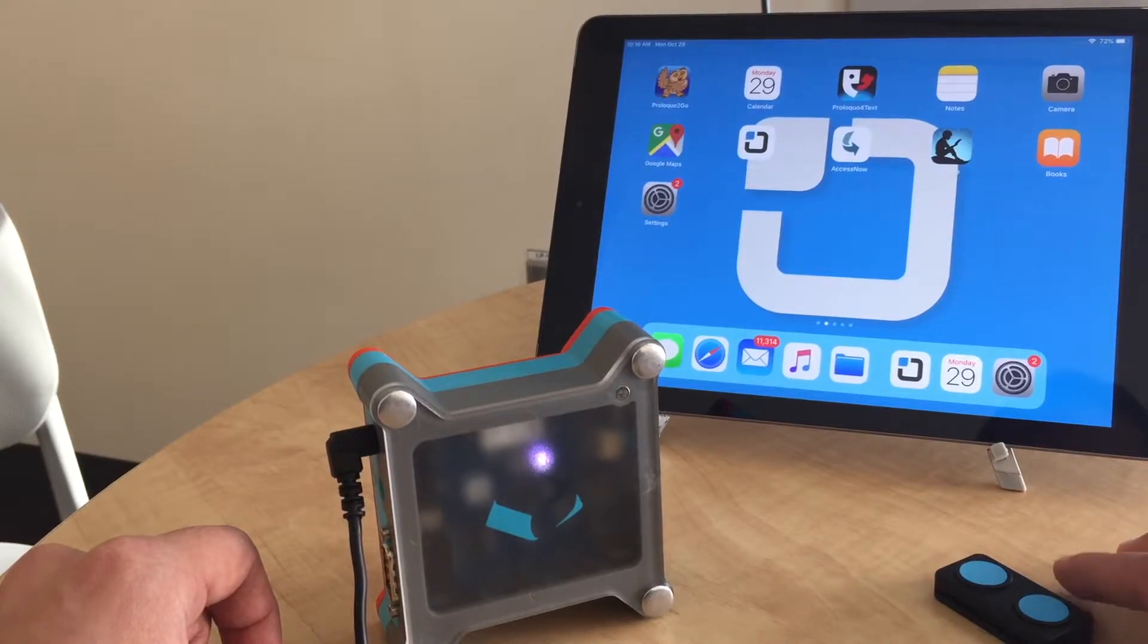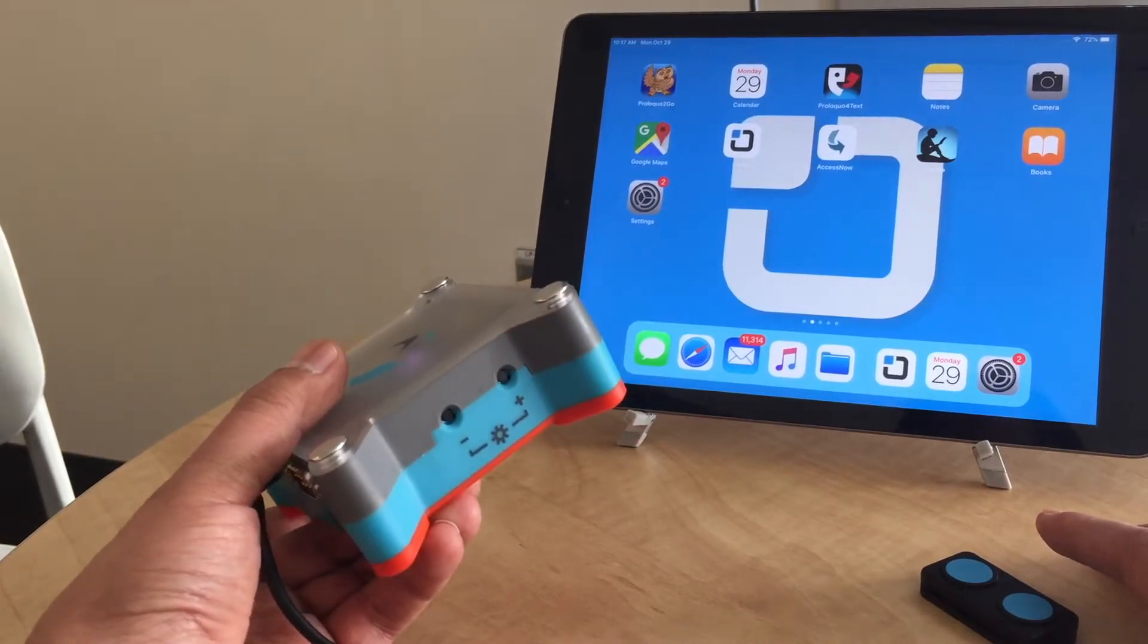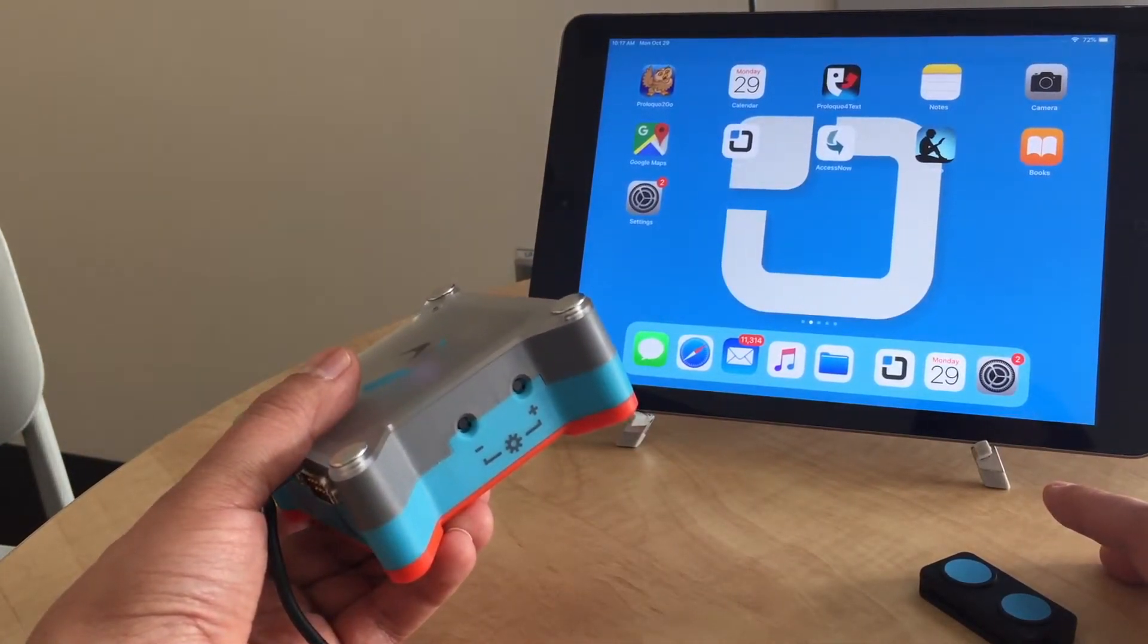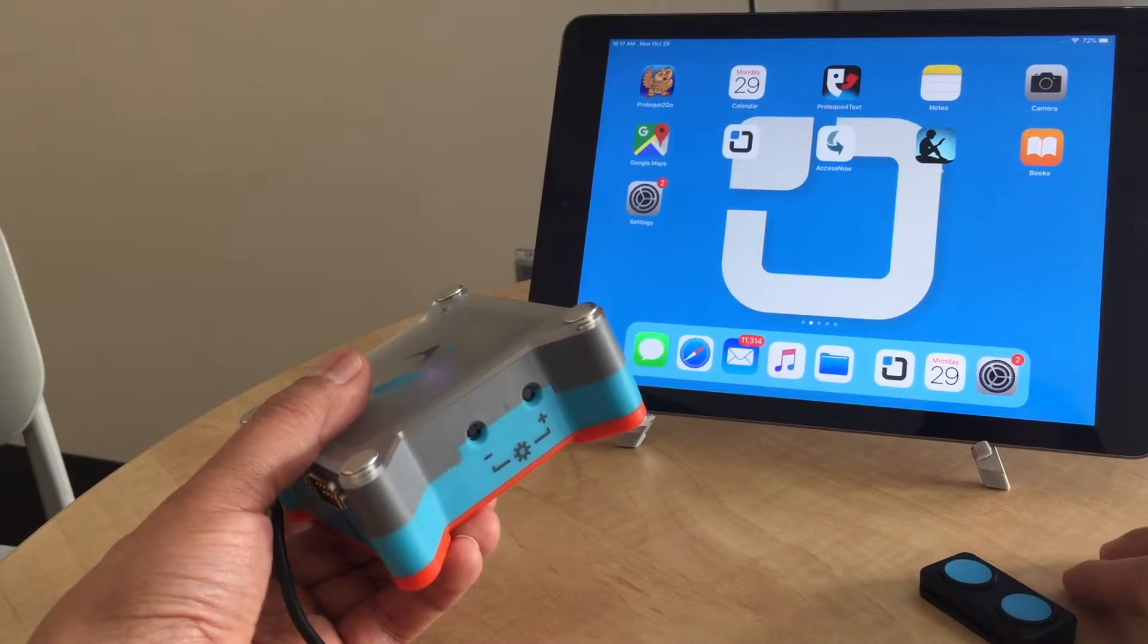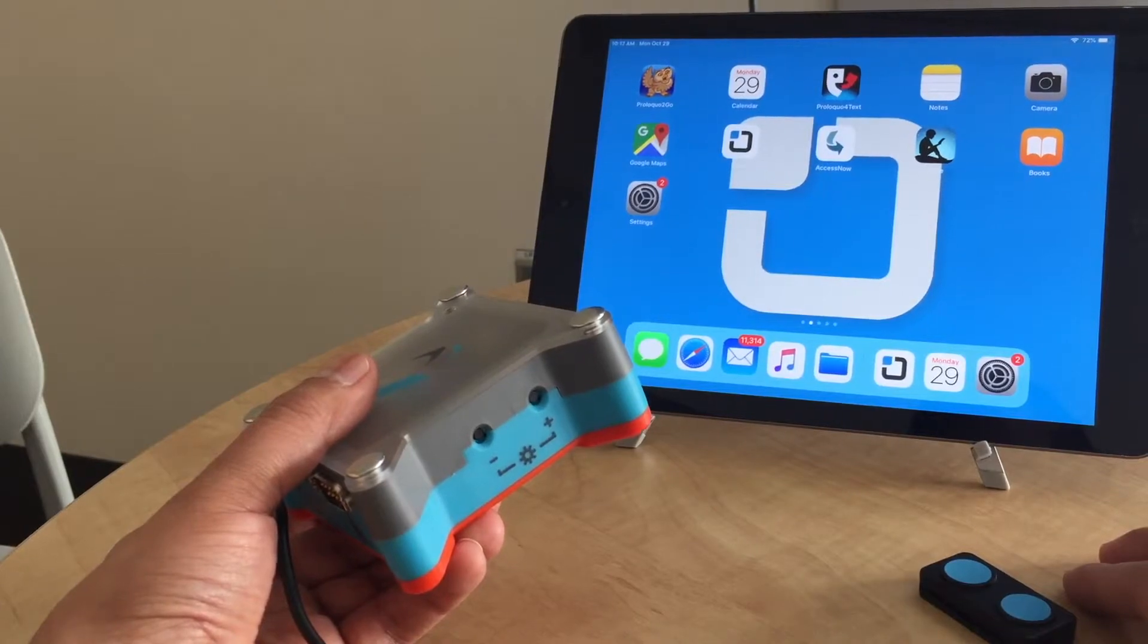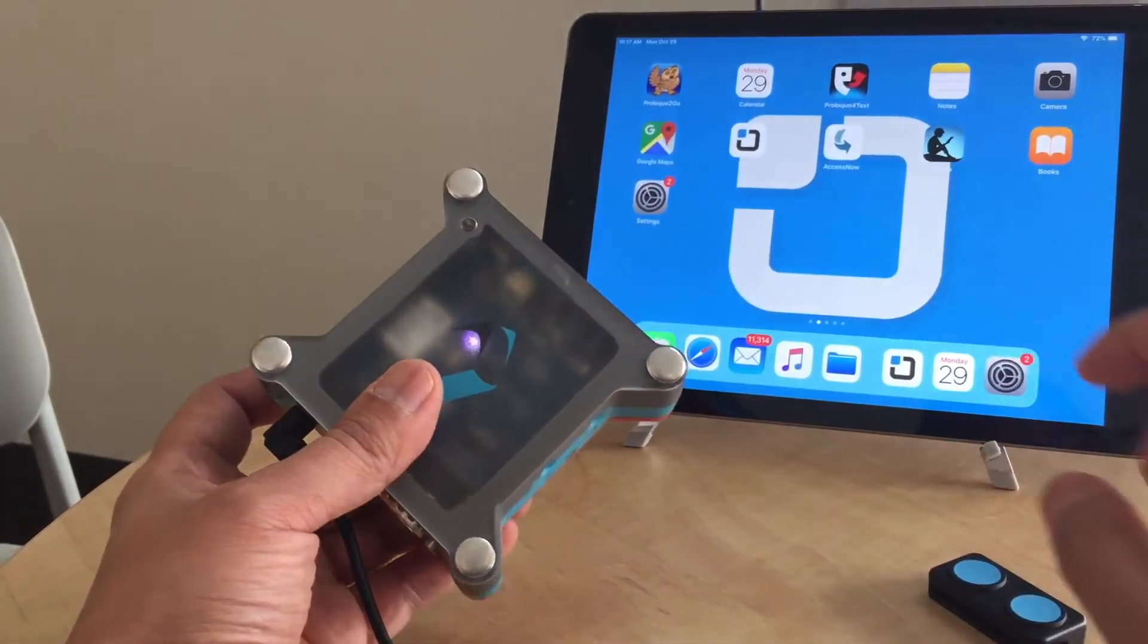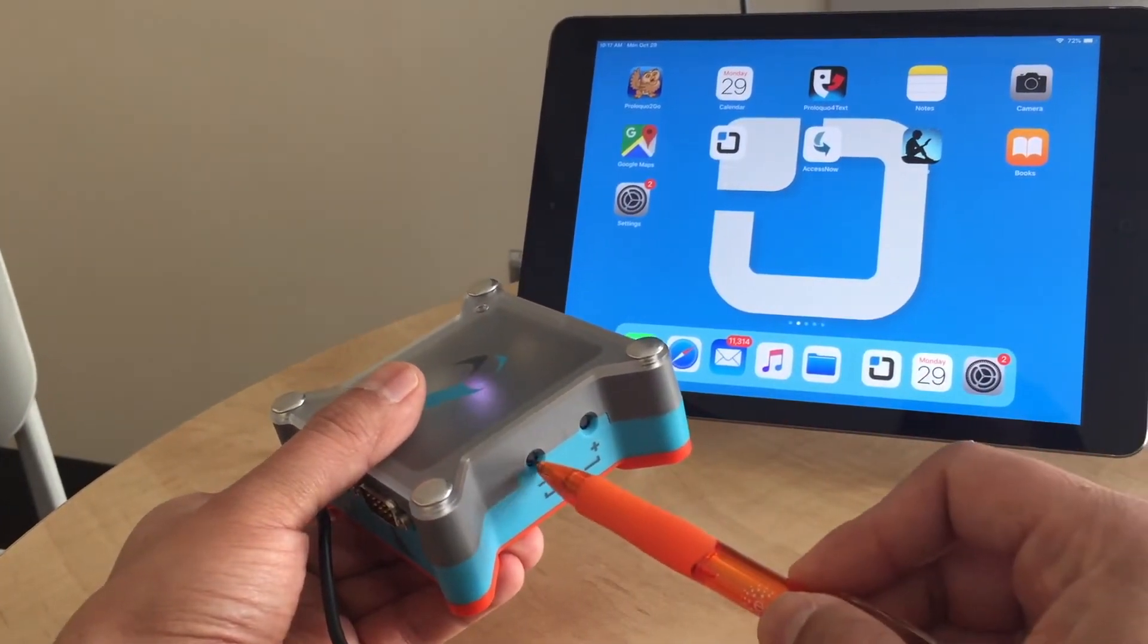In order to turn that off, you need to use the recessed buttons at the bottom of the Tecla. The holds built into the hardware can have 25 different lengths. To make sure you're on the right spot, when the Tecla is connected and slowly fading on and off to your device, press the minus button about 25 times.